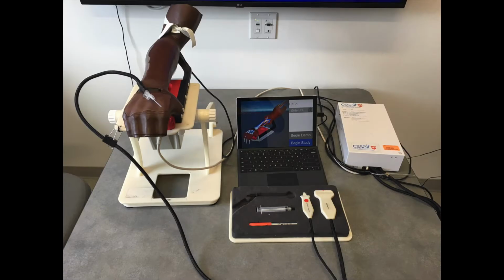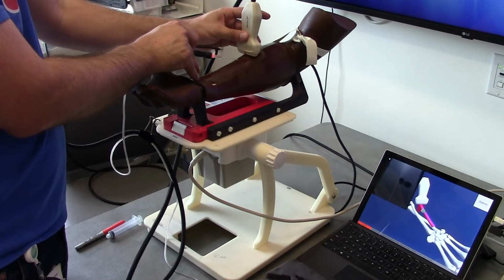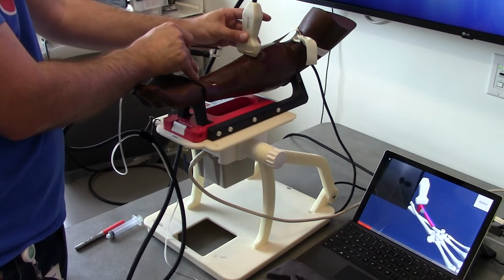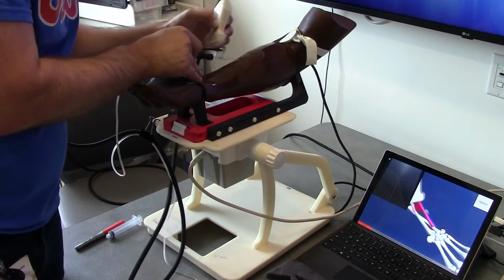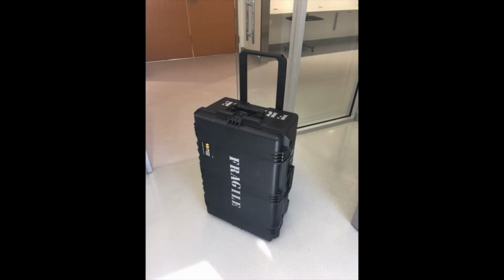Welcome to the Mixed Reality Ultrasound Guided IV Access Simulator. This robust, turnkey mixed reality simulator simulates the upper extremity for practicing, learning, teaching, and debriefing an ultrasound guided IV access procedure. It is dry, requires no fluids, and can be set up in 7 minutes from a padded case that meets checked airline luggage weight and size limits.